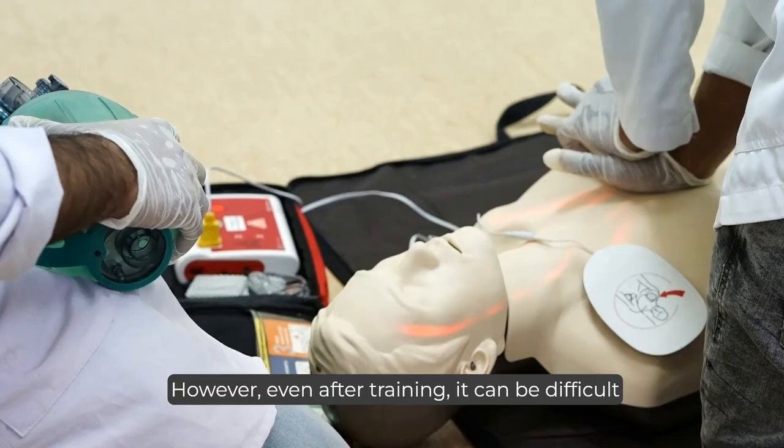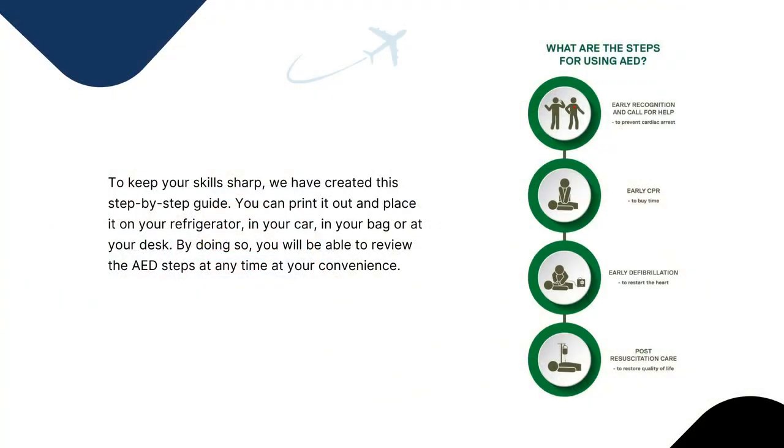However, even after training, it can be difficult to remember the steps to use an AED correctly. To keep your skills sharp, we have created this step-by-step guide. You can print it out and place it on your refrigerator, in your car, in your bag, or at your desk. By doing so, you will be able to review the AED steps at any time at your convenience.